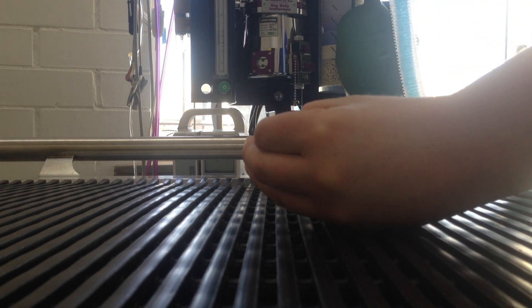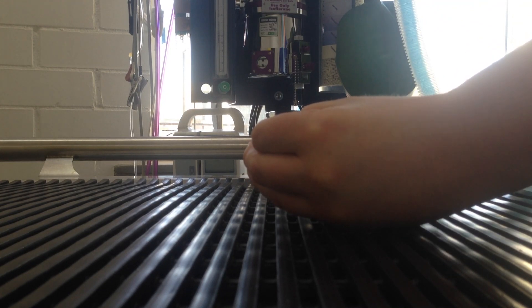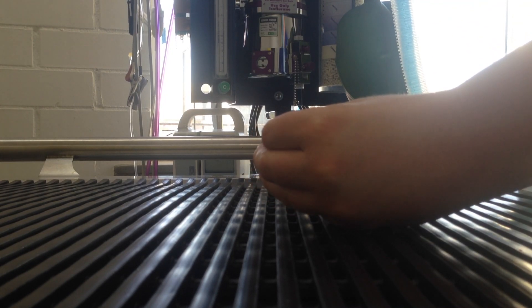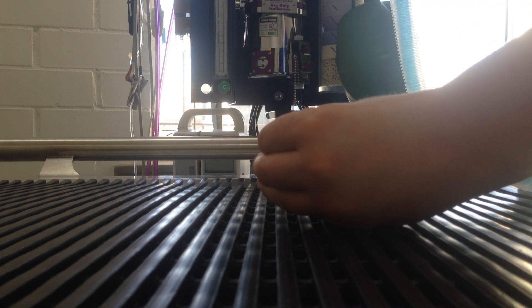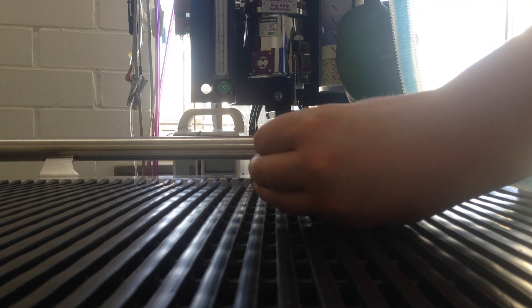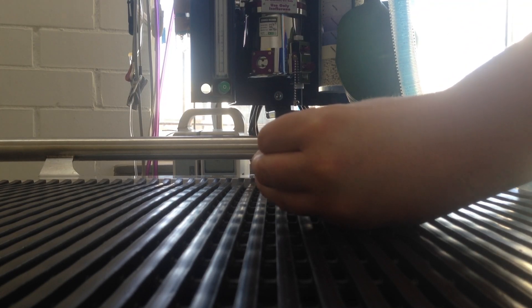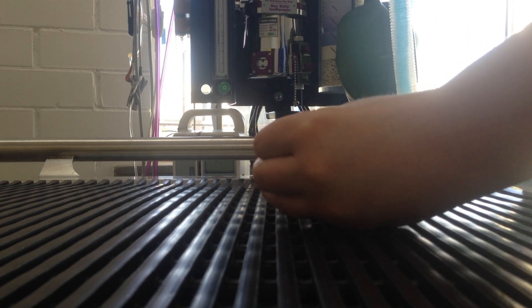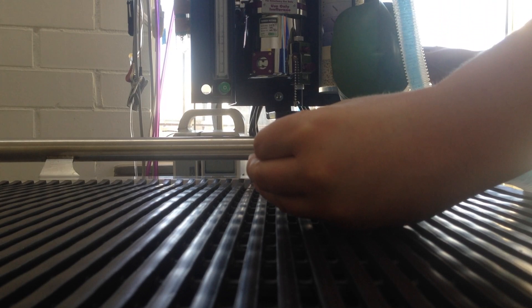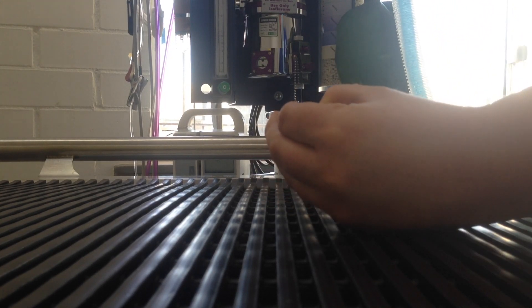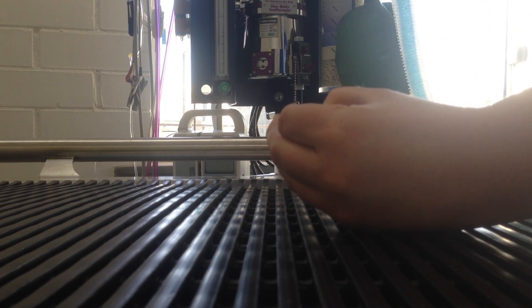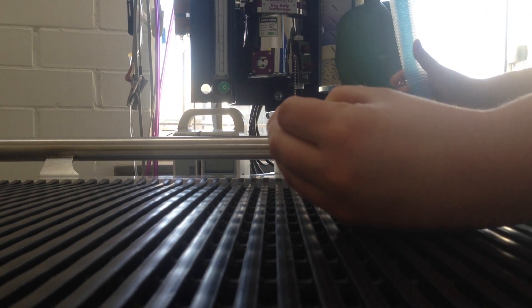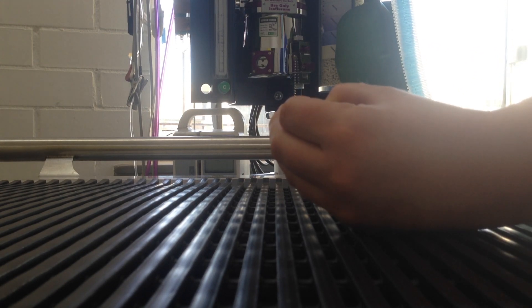Normally you wait about a minute or more to see if the bag starts to deflate. If it starts to deflate, it means that somewhere in here or even the bag itself there's a hole, and we need to replace this circuit.